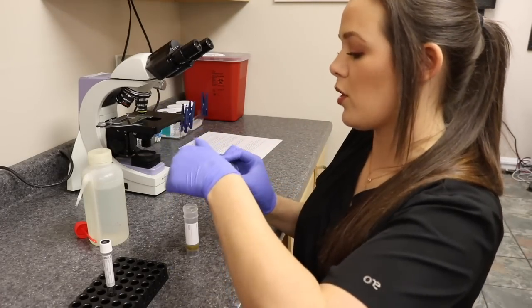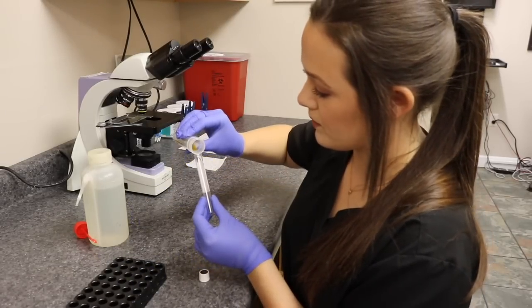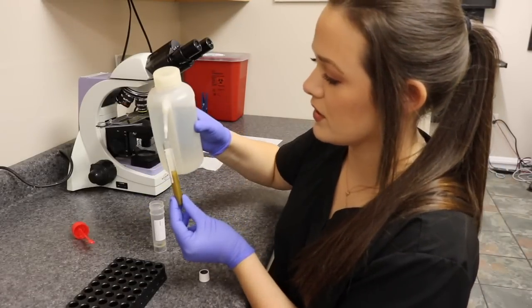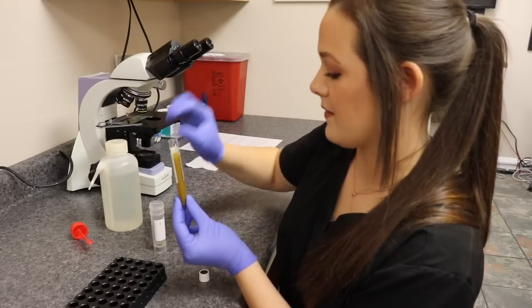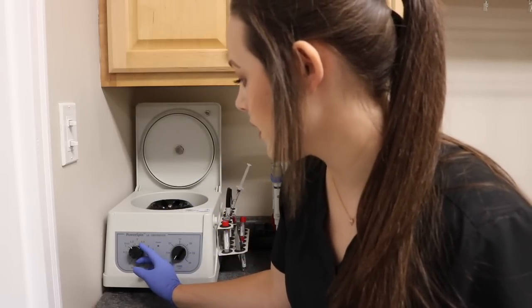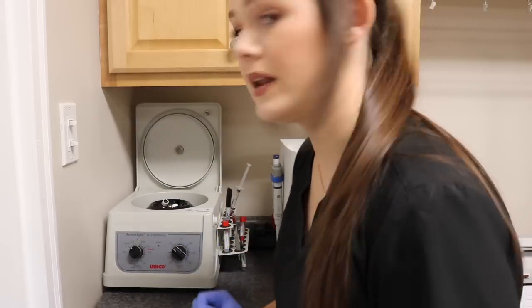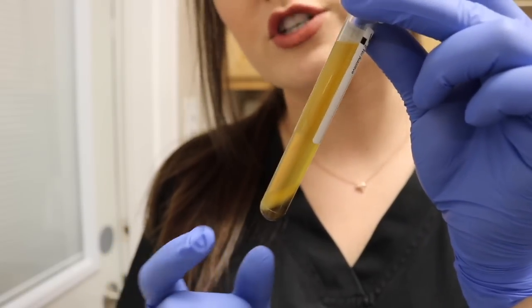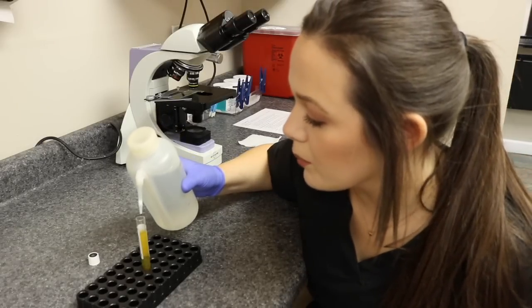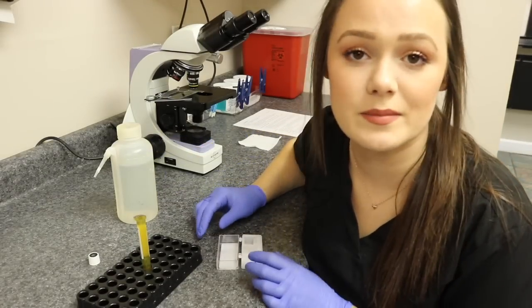The solution with the large particles I'll throw away. Then I'm going to take this tube and pour the sample in — it fills about halfway, so I'll add a little more fecal solution, leaving a little space at the top. I'll put the cap on and go centrifuge it. Our centrifuge has a setting for fecals, so I'll put it on that setting and let it spin for about 5 to 10 minutes. Once centrifuged, the sediment is down at the bottom. I'll fill it to the top until I get a bubble, take a cover slip, place it on top, and wait 10 to 15 minutes just like last time.